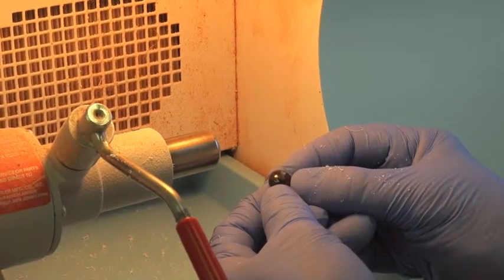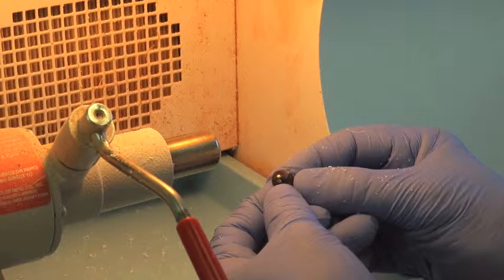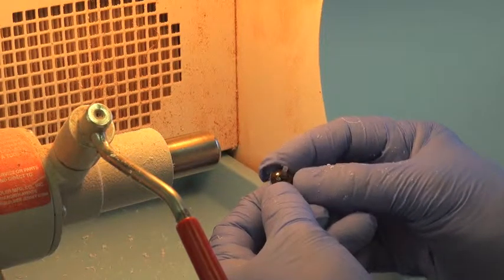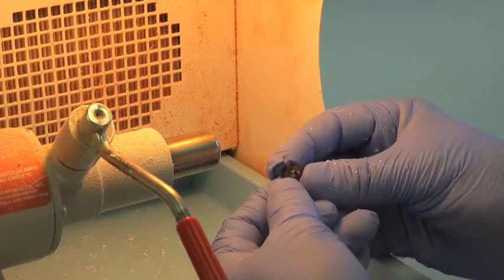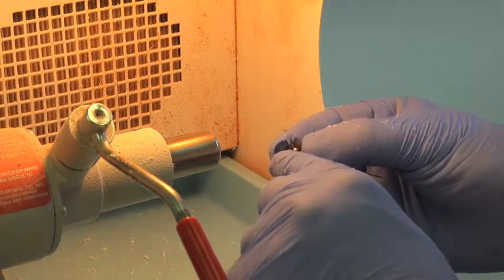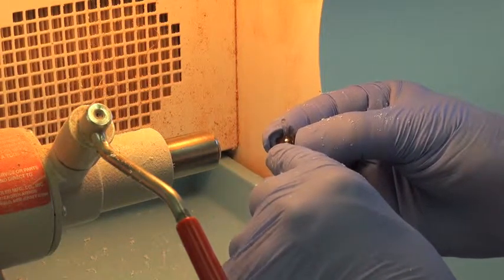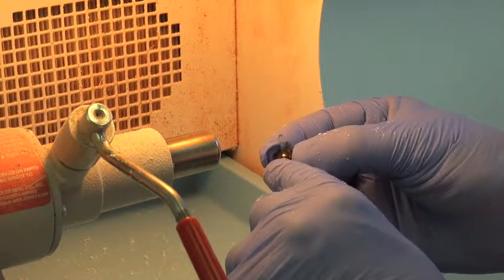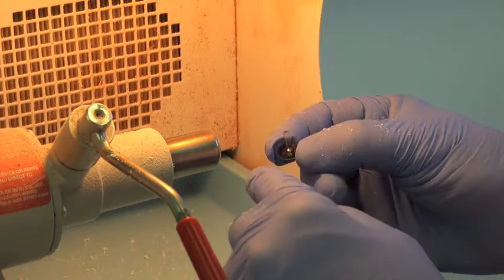Here is an Irises Unlimited image as you will receive it in your mailbox. I'm going to show you how we're going to bevel the edge, the limbal edge, that's going to help create a softer limbus when you're finishing the prosthesis.